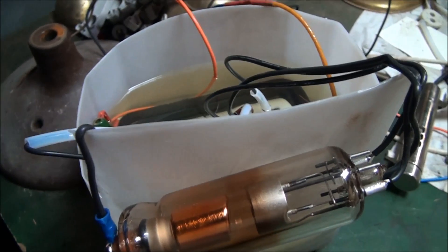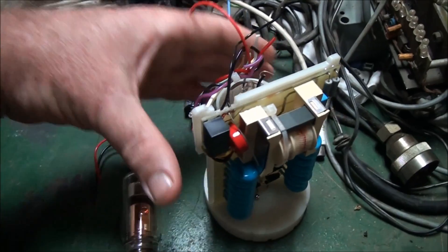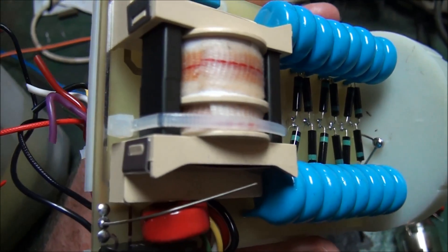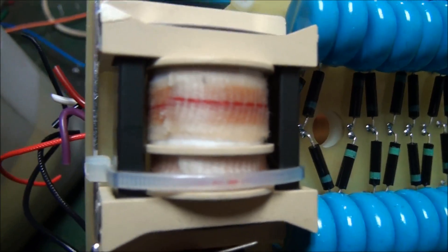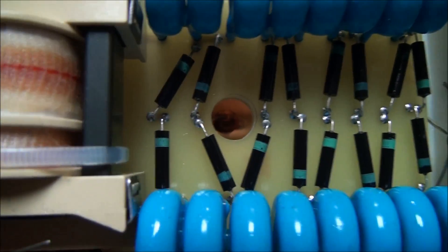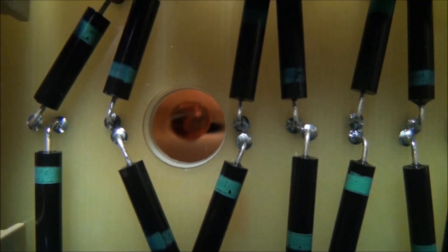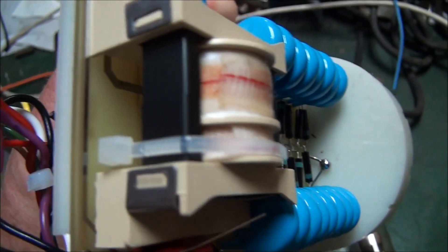So having said that, I'll show you a couple of others that I've also dismantled. This one here is a lighter one that they use nowadays — much lighter mainly because it uses much smaller components. This has a high frequency flyback style transformer which goes into a voltage multiplier stage, and through this little hole here is the actual x-ray tube, which sits in a shielded enclosure.